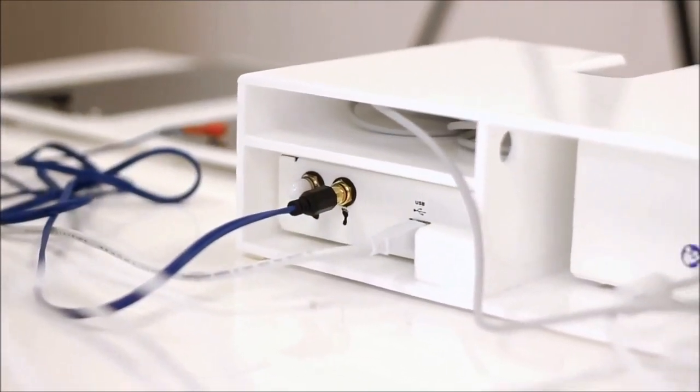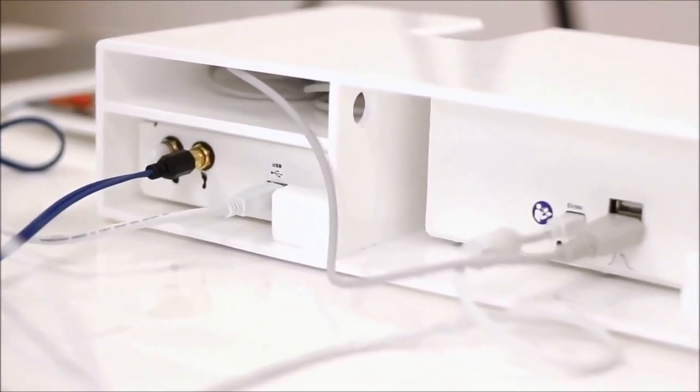If any of the connectors are not properly connected, the software will display a warning message.